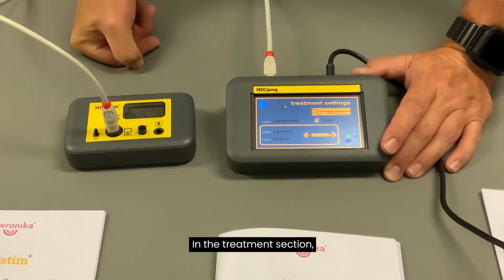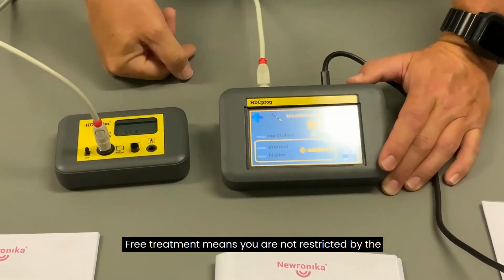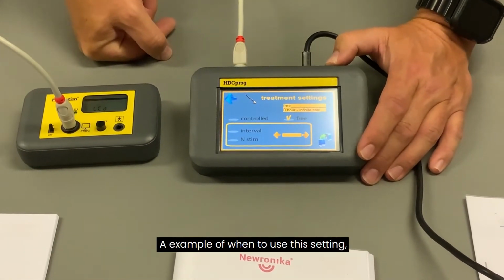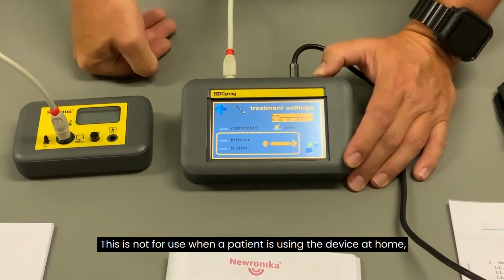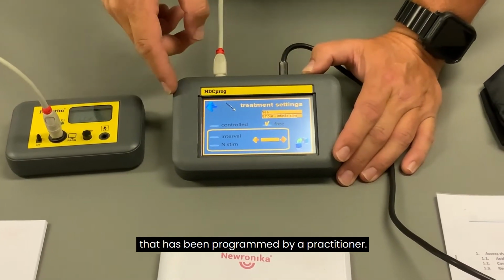In the treatment section, there are the options controlled or free. Free treatment means you are not restricted by the number of treatments you can give in a time period. An example of when to use this setting is when you're treating in a clinic and you might have patient after patient. This is not for use when a patient is using the device at home. In that situation you would use controlled, which has been programmed by a practitioner.